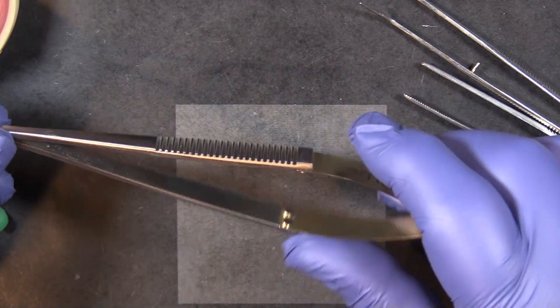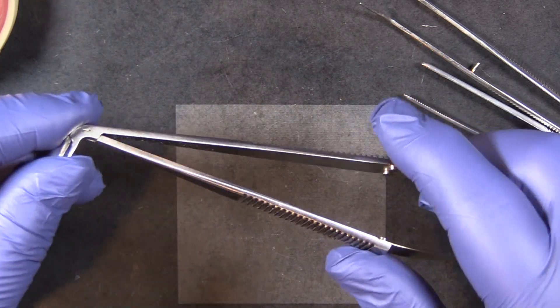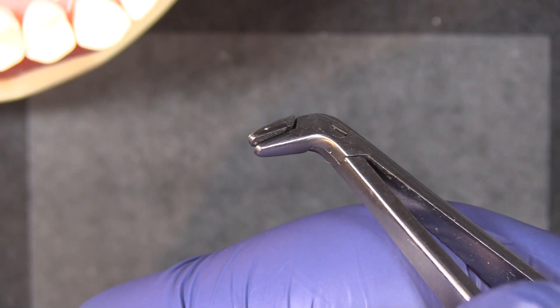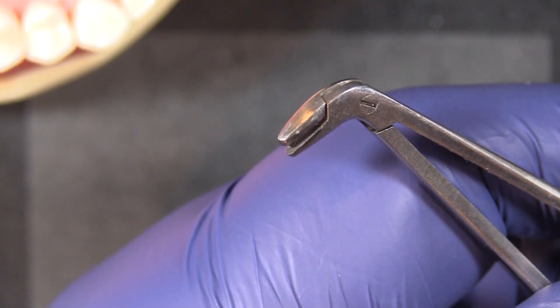The part number for this is BFA-1. You can see that different colored portion on the tip. Those are carbide inserts and you can see the little teeth.